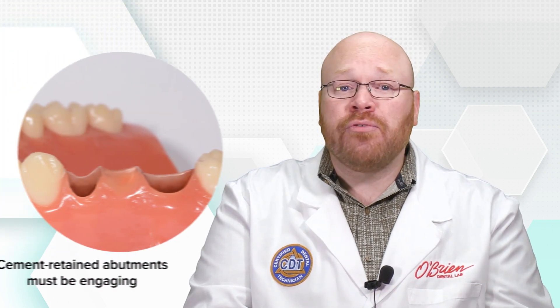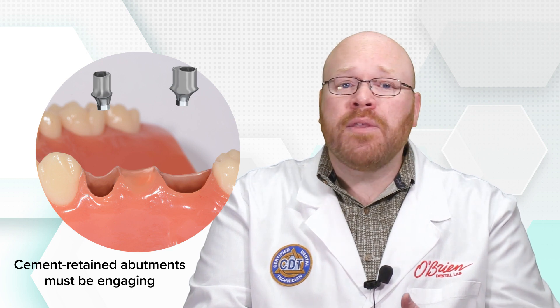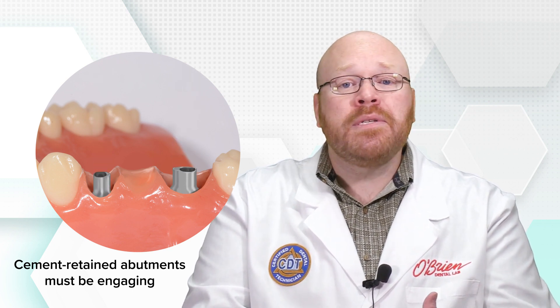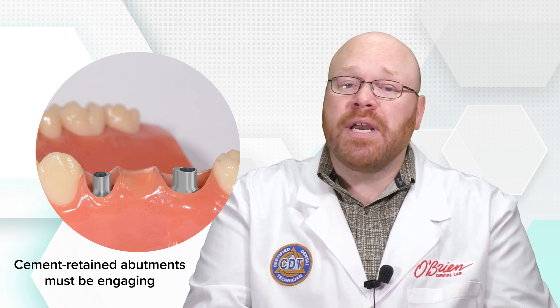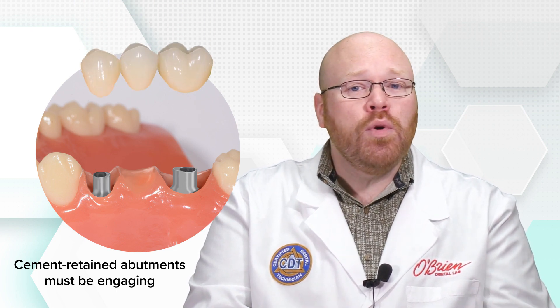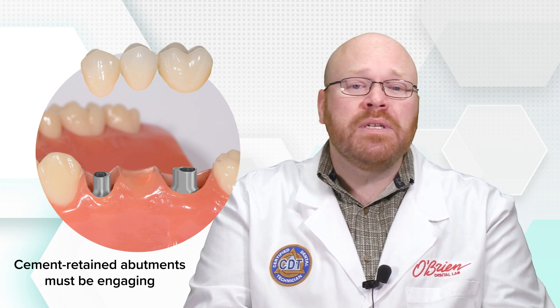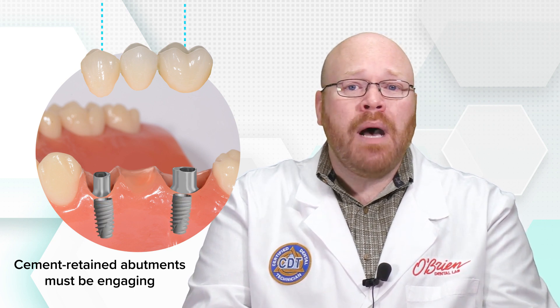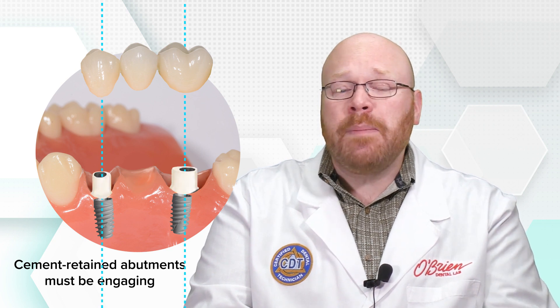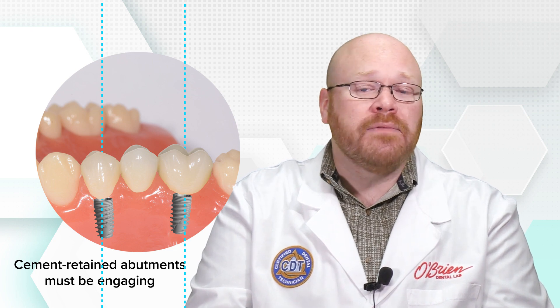When dealing with cement retained restorations, engaging abutments are always used, regardless of whether they're singles or splinted. This is because the abutments are being placed first without the restorations — if there were no anti-rotation, you wouldn't be able to get the accurate orientation of the abutment and the crown or bridge probably wouldn't seat correctly. When abutments are made for cement retained bridges, they're designed to be parallel with each other so that after the abutments are placed, the bridge will seat passively.